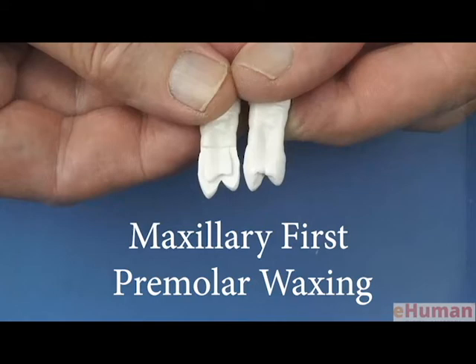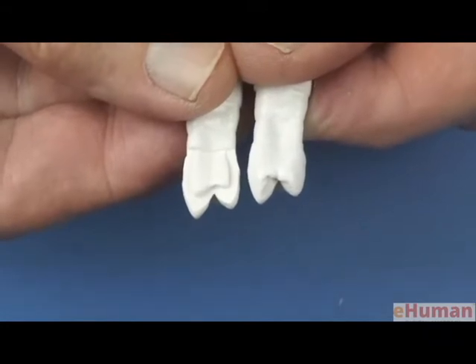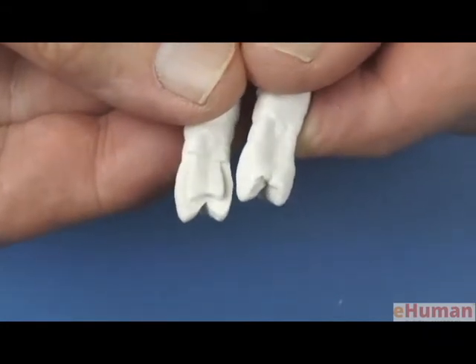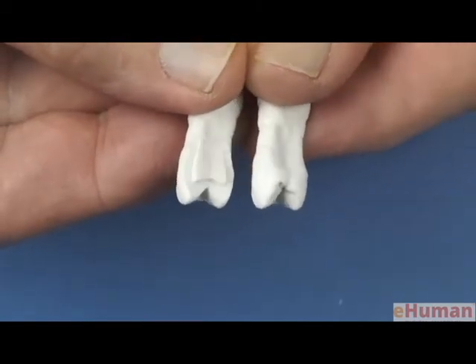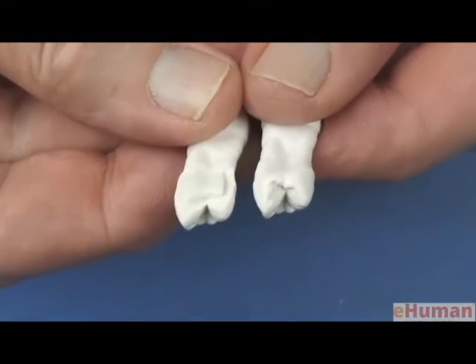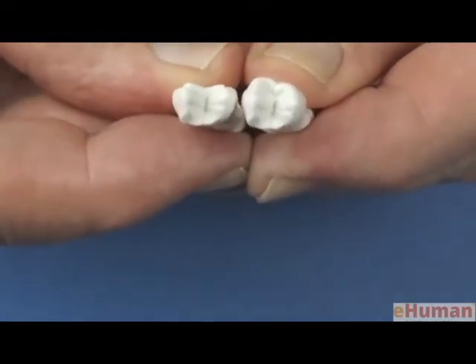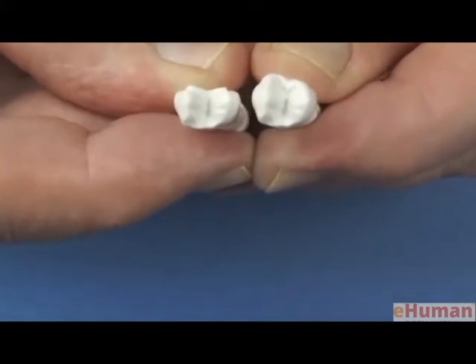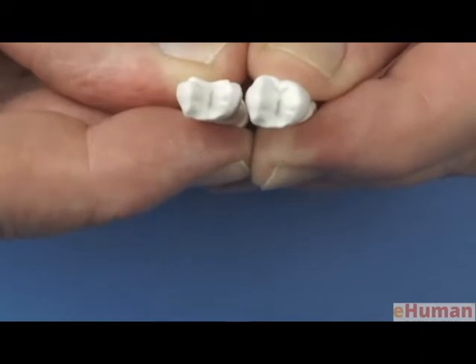Maxillary first premolar waxing. The maxillary first premolar has the mesial surface missing, and that will be built back in wax. It's a particularly interesting surface because of the unique characteristics present on the mesial surface of the maxillary first premolar, in that it has a marginal ridge groove.